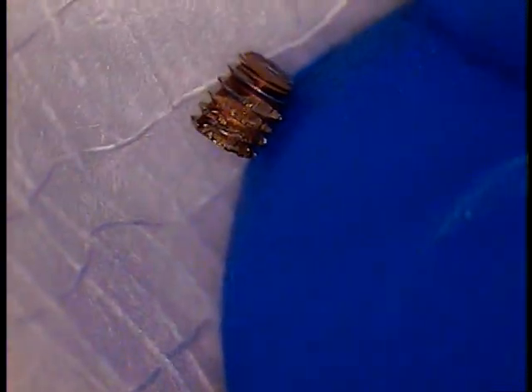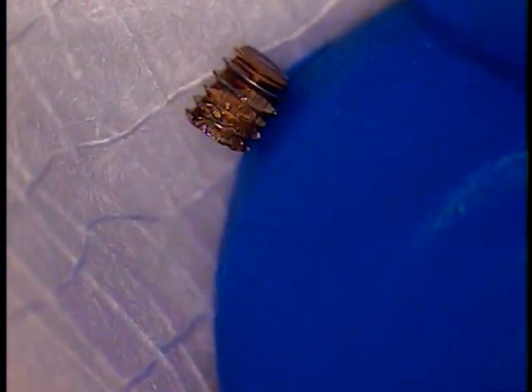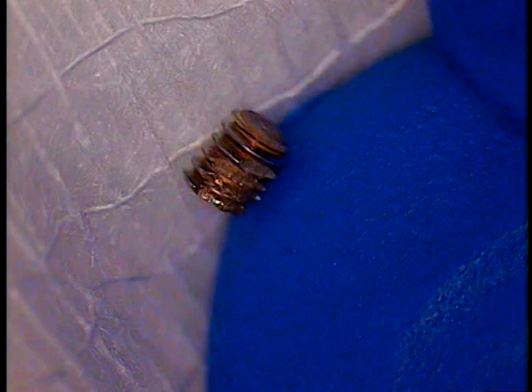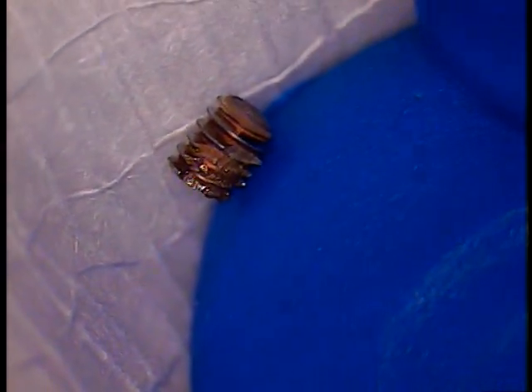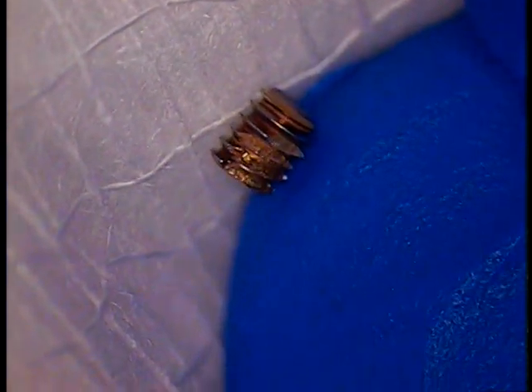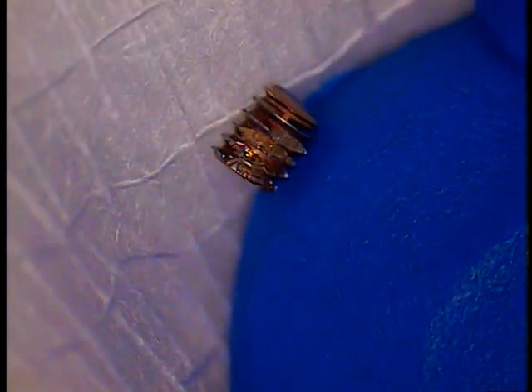Those were abraded prior to the screw going in, because they don't look like fresh fractures. So something happened internally. We're going to look for those fragments — if they're not in there, then this screw was utilized as is, unknown to the operator.